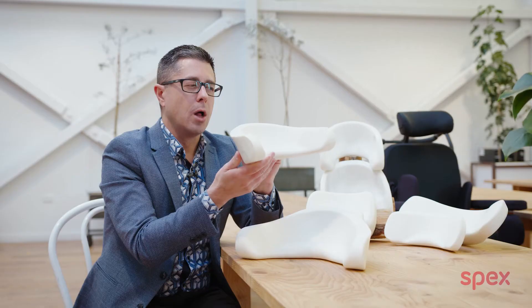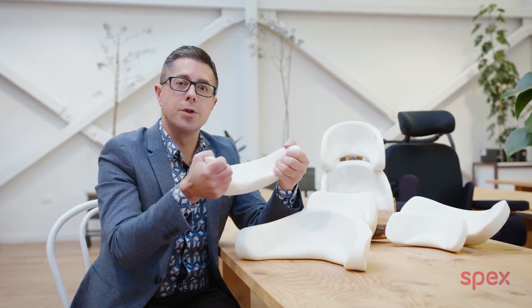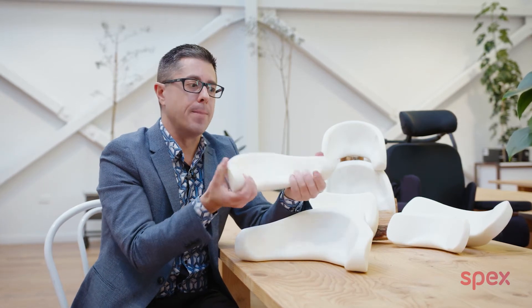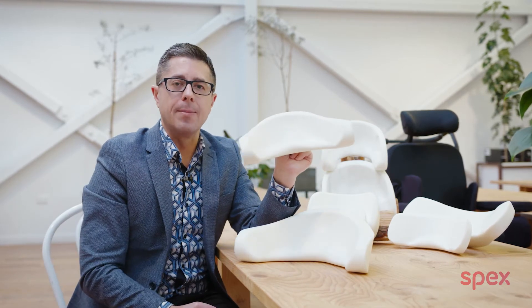It's a very nice lateral control headrest. Bearing in mind, you can also squeeze it tighter to wrap closer around the head, or open it up wider by bending it outwards if need be.